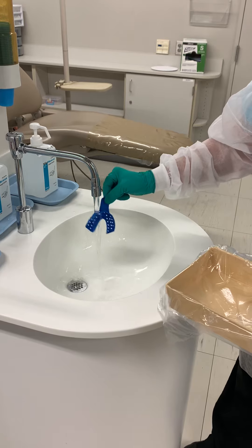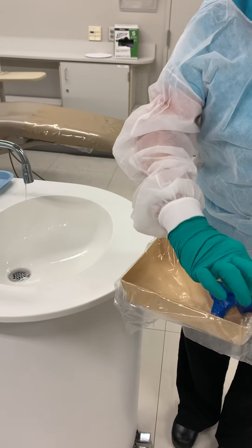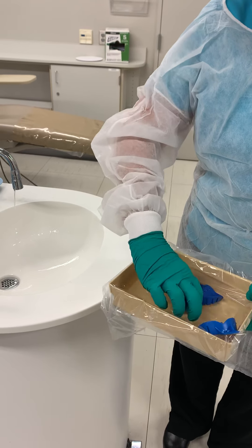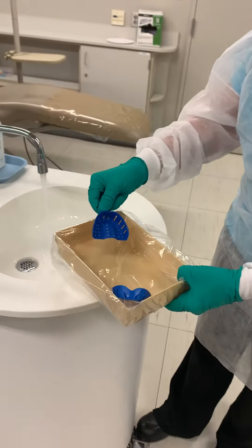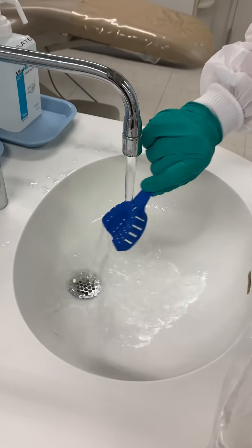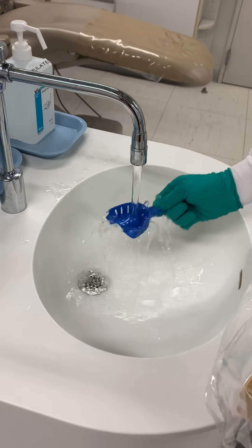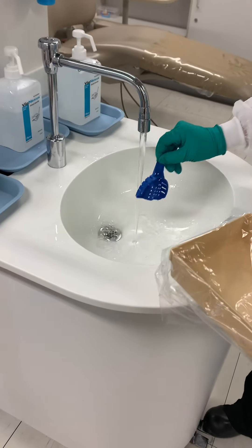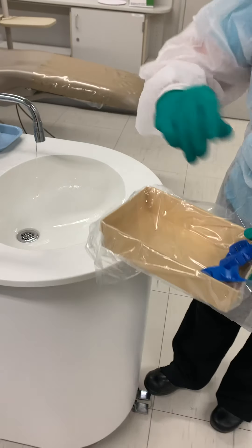Get the backside, everywhere. You're going to shake it off, and then I like to put it on the opposite side of the tray, just in case there's any debris or anything here. Second one — and keep it down, because if you do this we're going to make a mess. Shake it off, side of the tray.